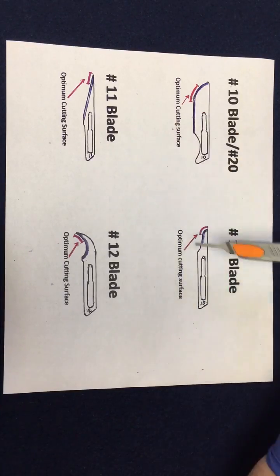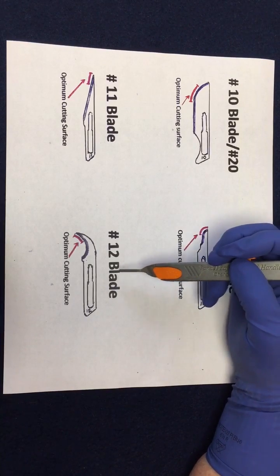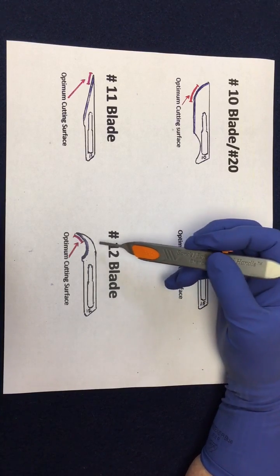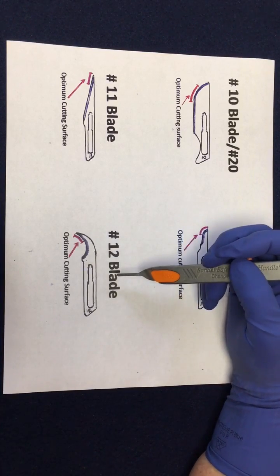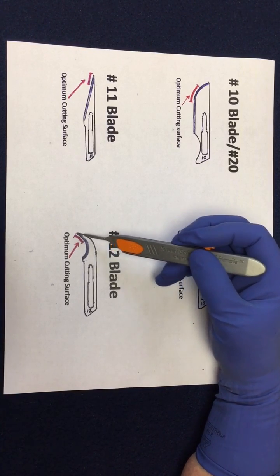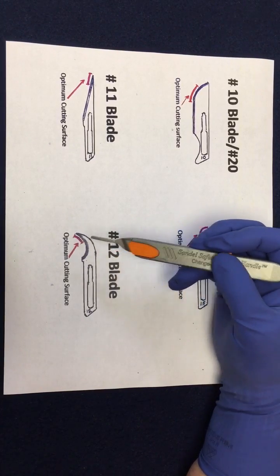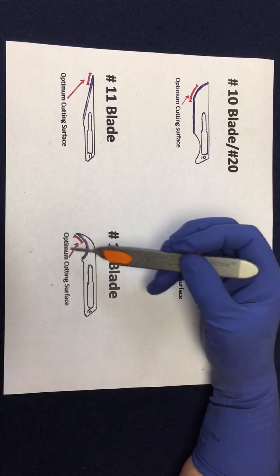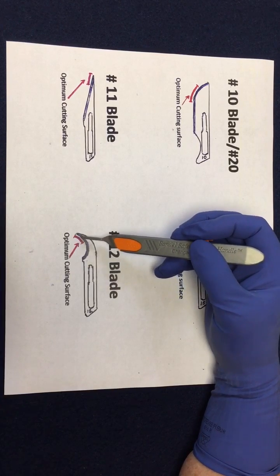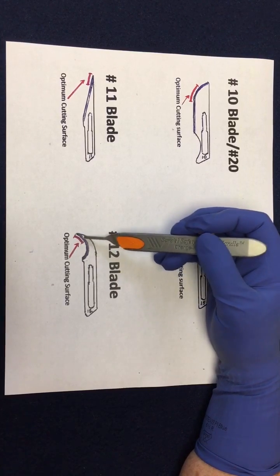The 12 blade I haven't seen used much since I don't work in ENT too much anymore, but I used to see it used on tonsils. The 12 blade is used when you want to hook something that's on a stalk — you hook it and then cut. You don't want to cut on the outer edge because it will be obstructed by the stalk above, like the tonsil. You want to use the tip to hook it and pull, so you're not cutting anything blindly.